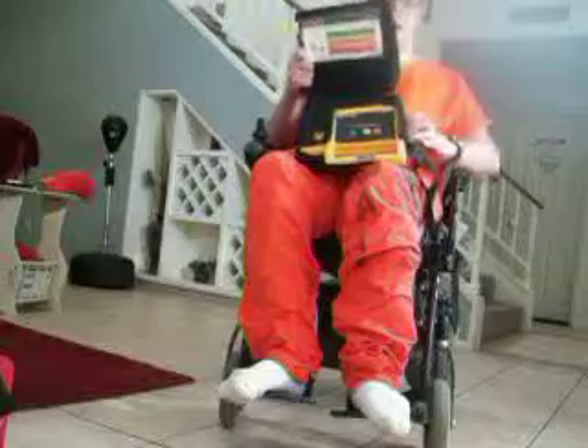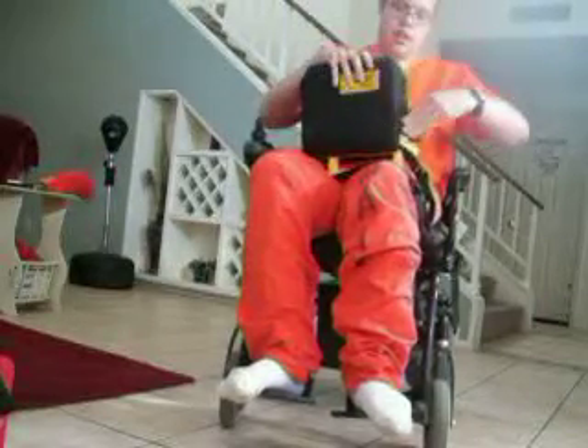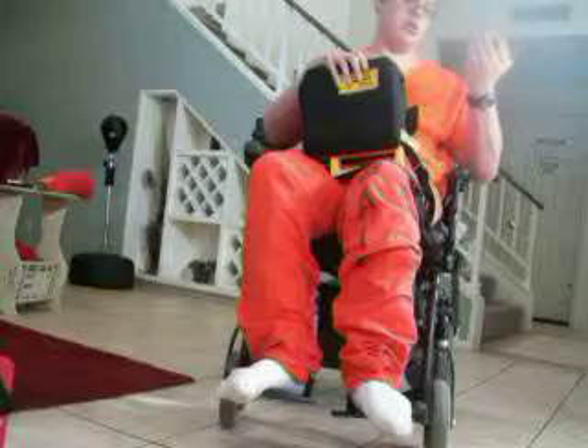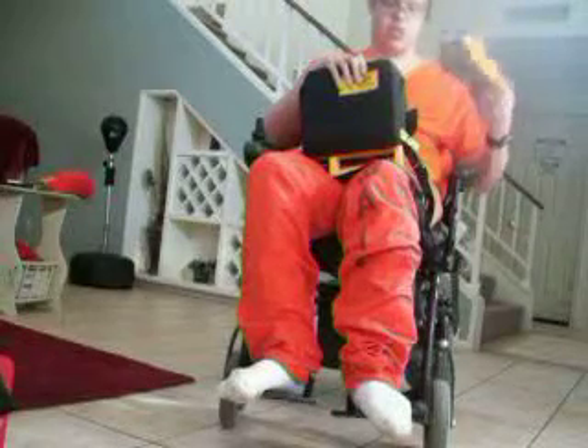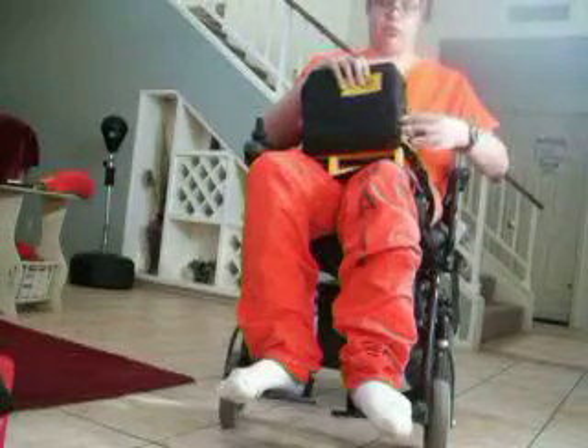Maintenance on this unit is very easy. It runs self-tests by itself. The battery is accessed by tipping this little velcro door, and then there's a little black trigger. There's the battery. Apparently this was installed in 2013, so it was installed last year and it's got three more years on it.